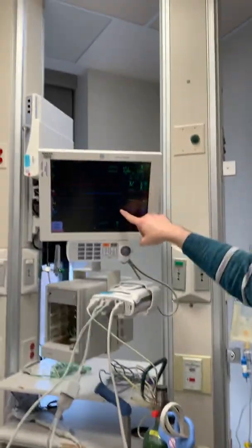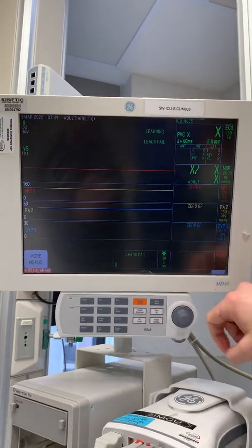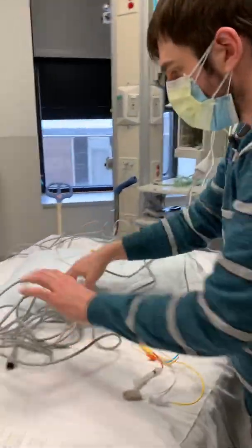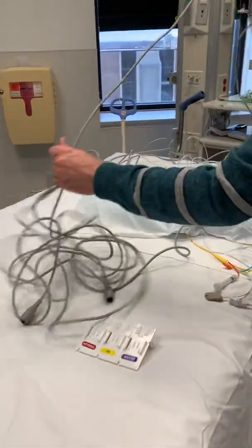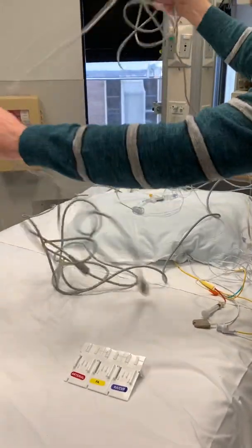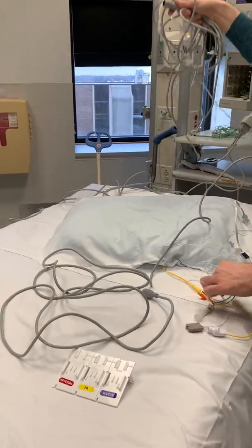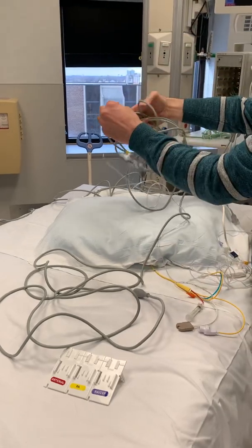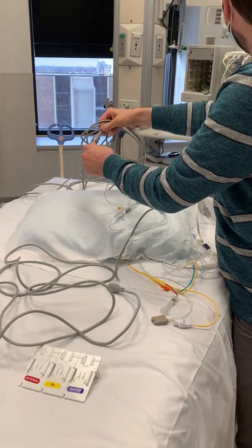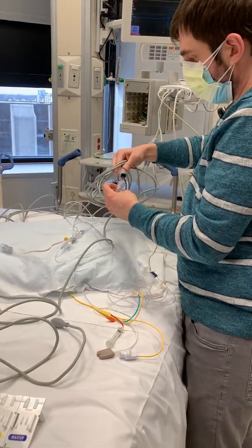When you plug in your pressure cables, you're going to have to put in the splitter and then plug in one, two, three. You'll see on the monitor when we plug in — we got a red for your A-line, a yellow for your PA, a blue for your CVP. This is maybe the only tricky part — you've got to figure out which one's which. Your A-line will already be plugged in separately. So what you can do is, we have this side connected to our PA. Plug one in — I can see right away, that's our CVP. So let's unplug that and put that into our CVP port.